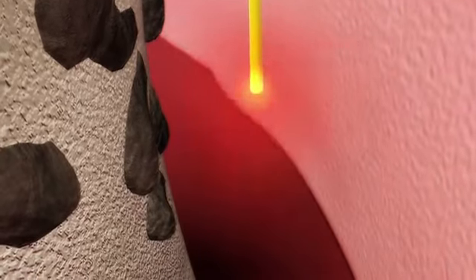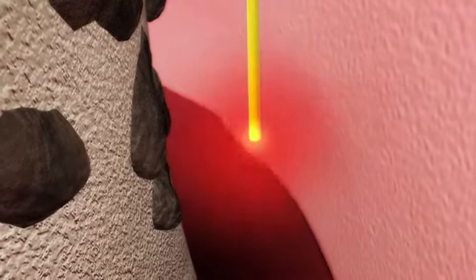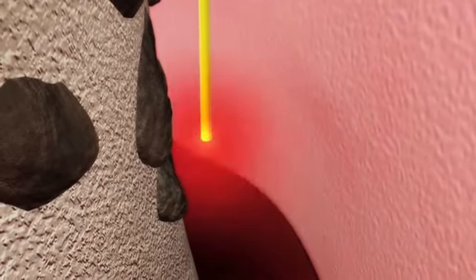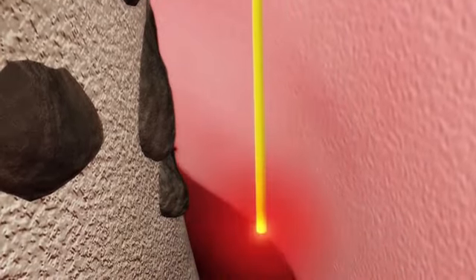Removal of the diseased epithelial lining with ND YAG laser energy also serves to create room for insertion of the Erbium YAG laser tip into the pocket to assist in the next step, calculus removal.